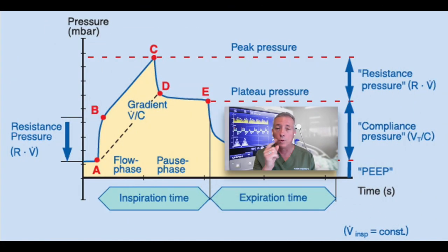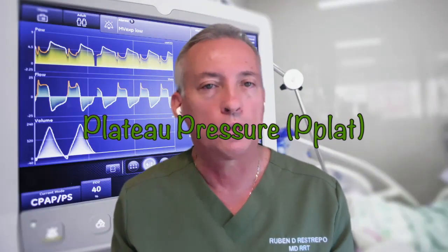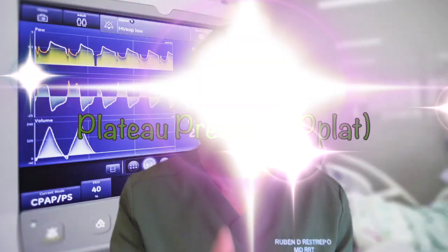One of them is going to be decreased lung compliance. The other one is increased Raw, or increased airway resistance. So when you walk to the bedside, you ought to be thinking, how do I determine, also visually, what is going on? What do I have to do? In order for me to split that peak pressure into resistance or compliance, I need to measure the plateau pressure. And of course, you know that plateau pressure is obtained by just pushing the inspiratory hold.